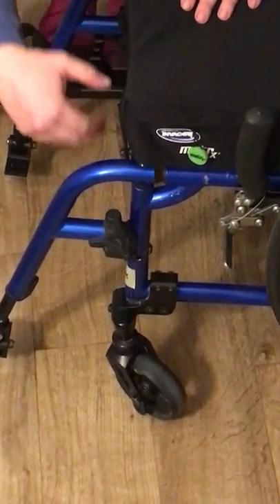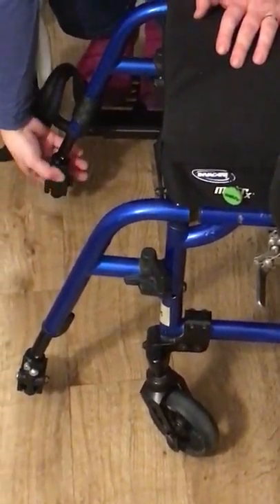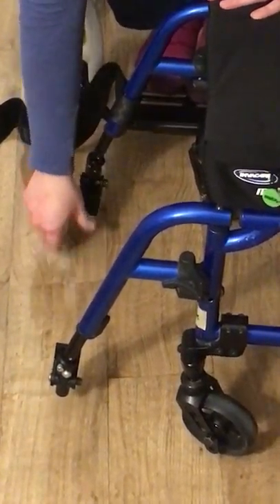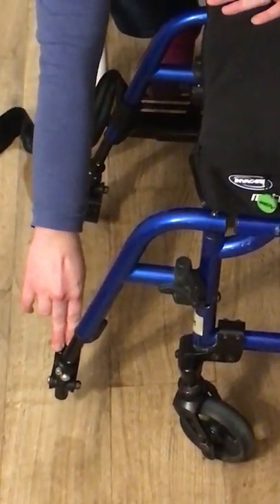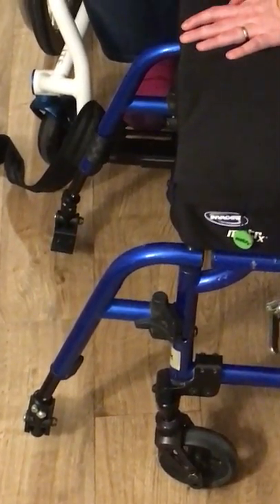If you don't find a button at all, it's probably just a lift-out one. You can also flip up or flip back your footrest a lot of times to get it out of your way for a transfer.